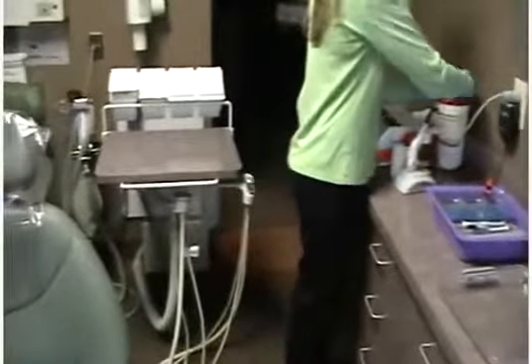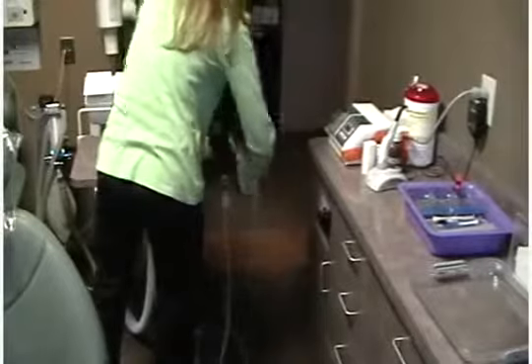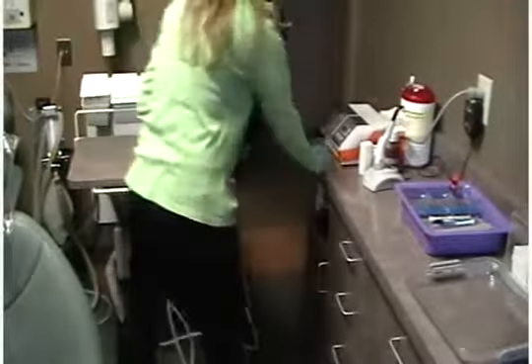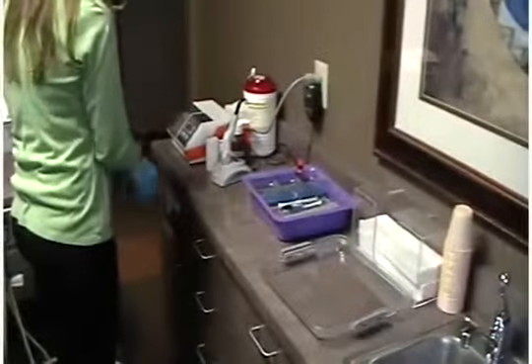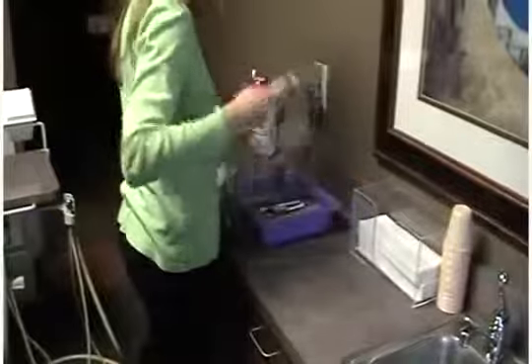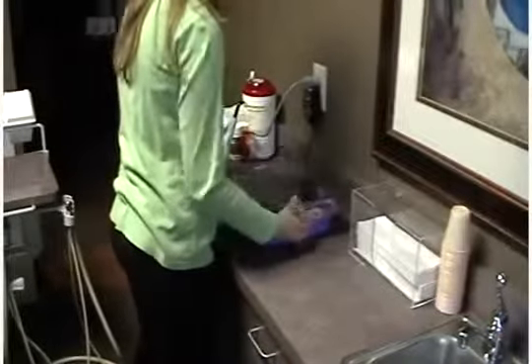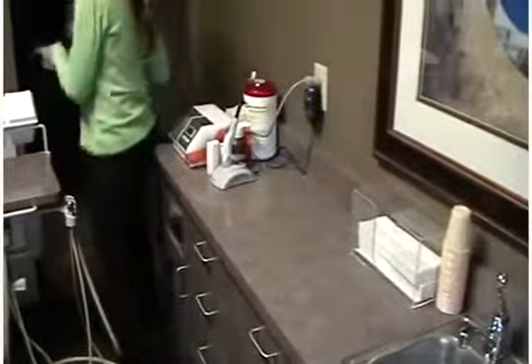You can now lock on your tray cover and surface disinfect any items that need to be stored back into the tub. At the same time, lock the cover on the tub and surface disinfect the outside of the tub. Both the tray and tub will be ready for safe transportation back to central sterilization. Complete the process by finishing your normal surface disinfectant process of any other equipment in the operatory and removing any barriers used.